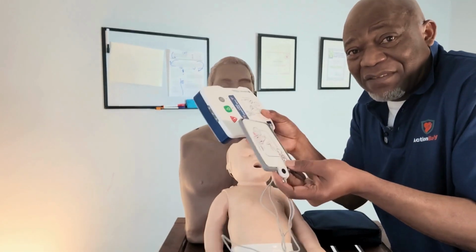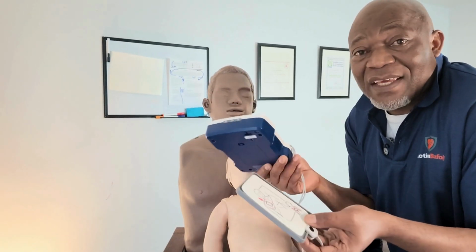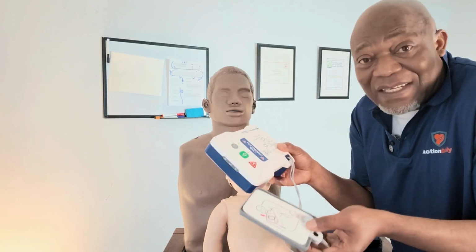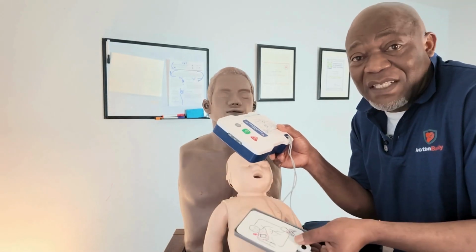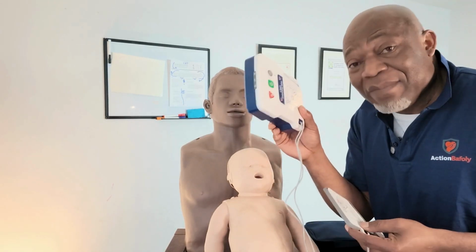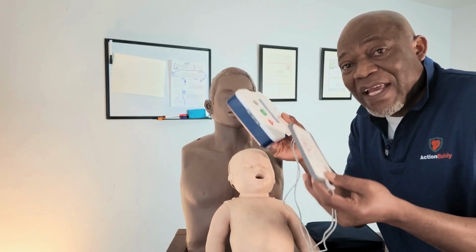I decided to demystify this and go step by step, because before I started training in this industry, I was also intimidated by an AED. That's why I said, let me go through this so that people should not feel how I was feeling. Most of the time, people are afraid of pulling out the AED because they think they cannot handle it. As I have mentioned, you simply have to follow the prompts that the machine, the software, is indicating to you.